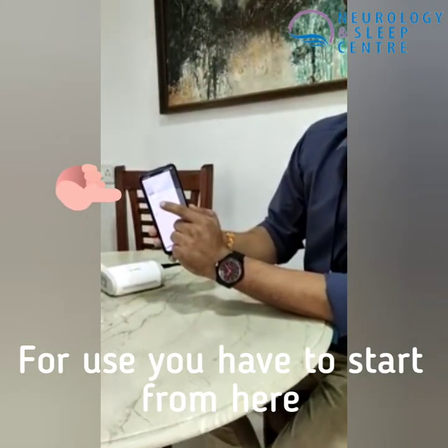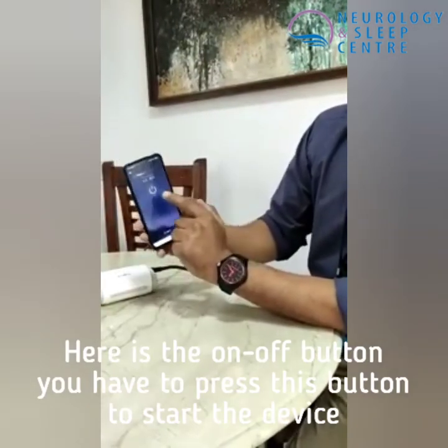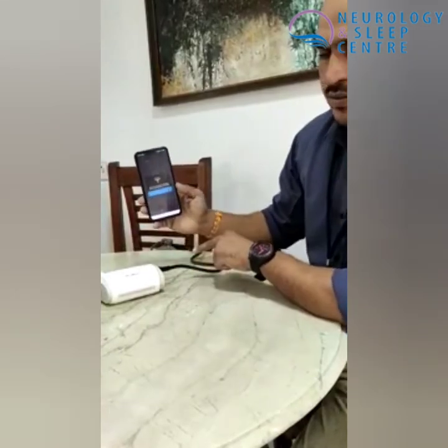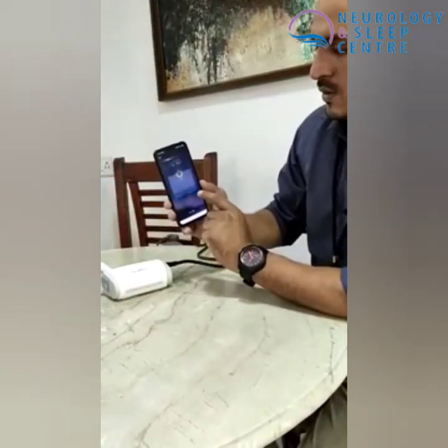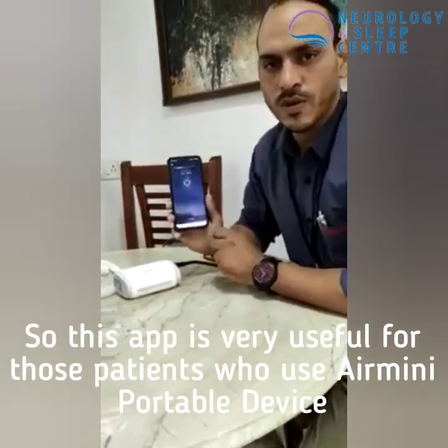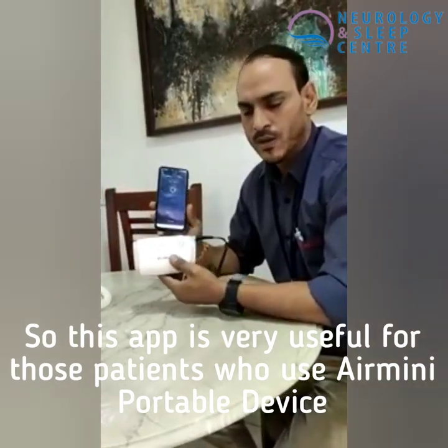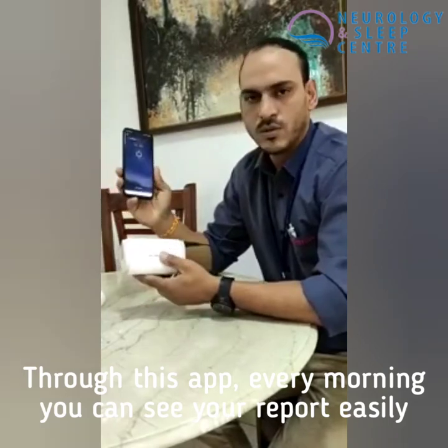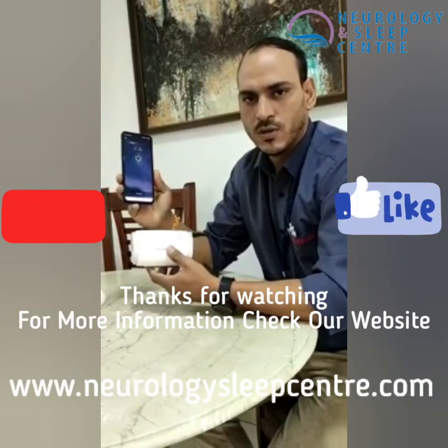You can also start your device from the app — I'll just press it from here and the device will start. You can feel the sound of the breath. Now it's off. This app is very useful for patients using the AirMini CPAP machine, which is a portable device. Every morning they can see their report. This is the video for all my AirMini users — thank you so much.